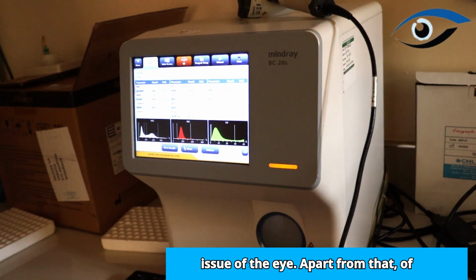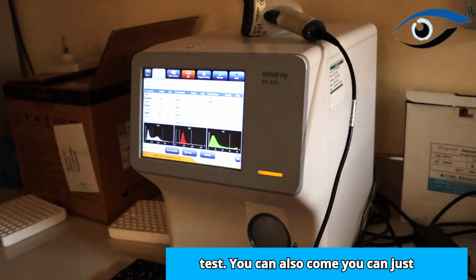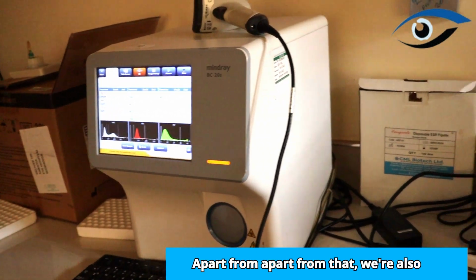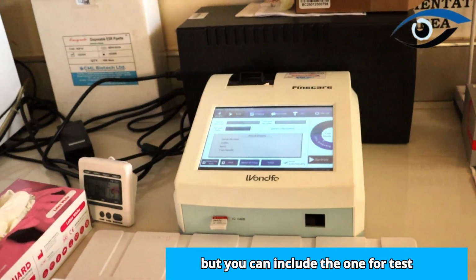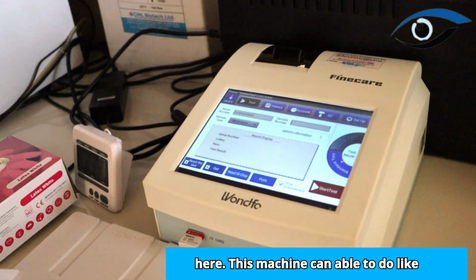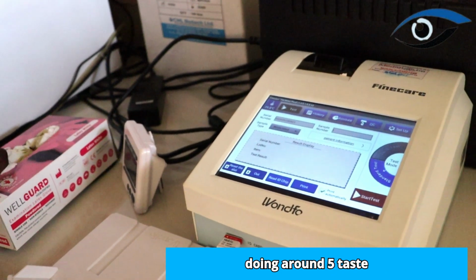Apart from that, of course, that is a general test. You can also come and request, and you can do the same test. Apart from that, we are also doing some special tests. The machine may look small, but you can include the one for tests here. This machine is able to do about 11 tests, but currently we are doing around 5 tests.